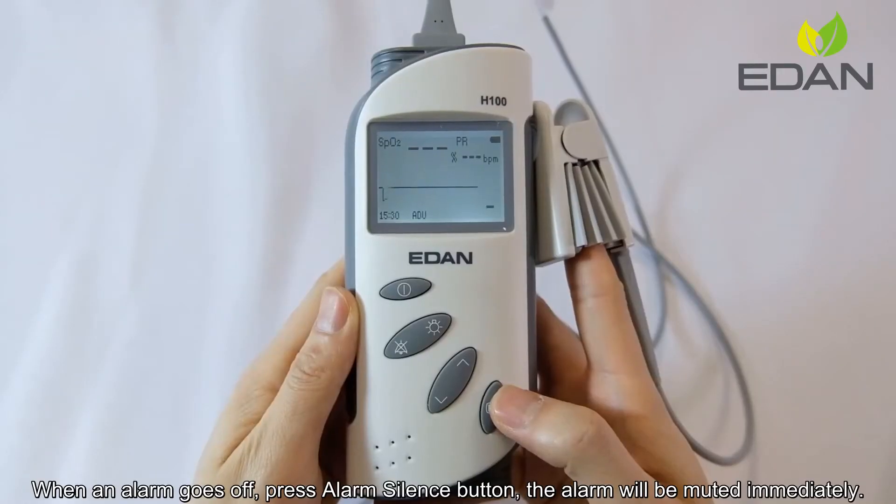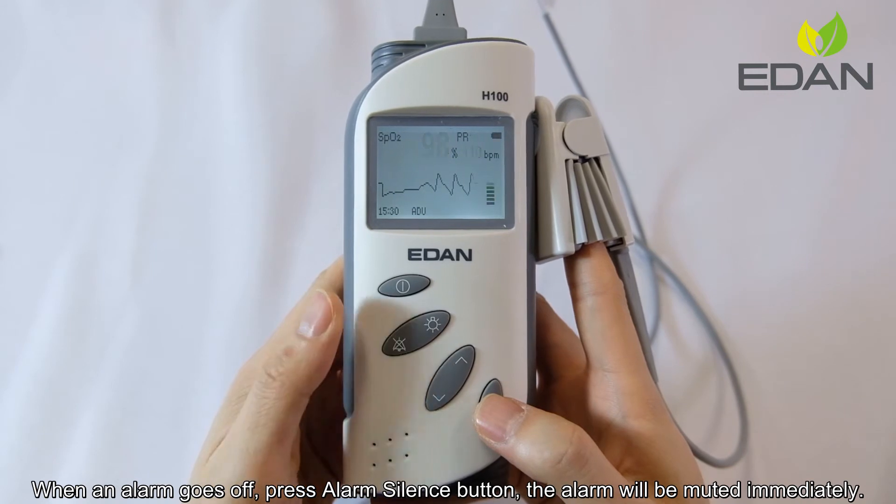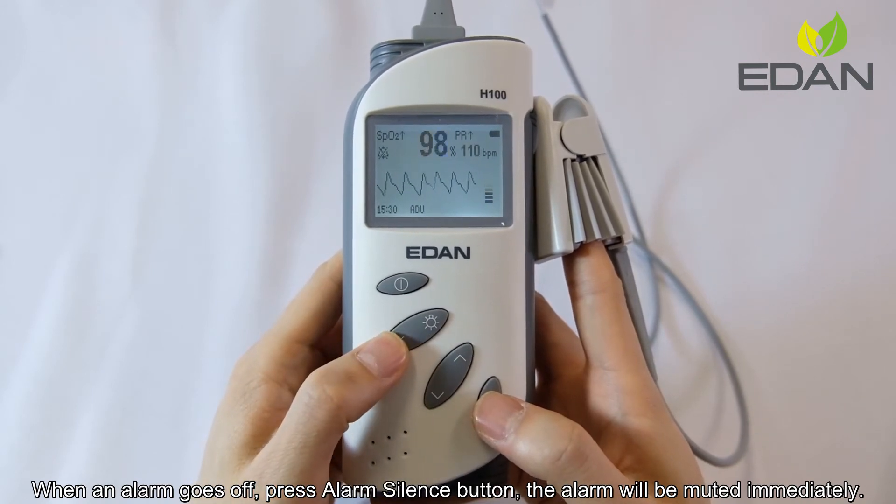When an alarm goes off, press the alarm silence button and the alarm will be muted immediately.